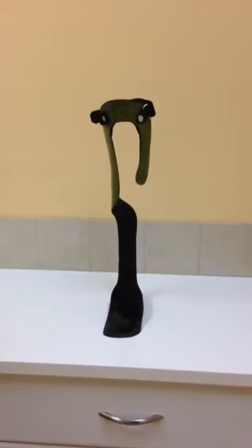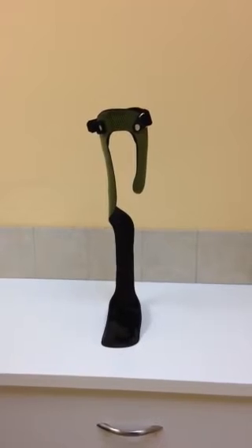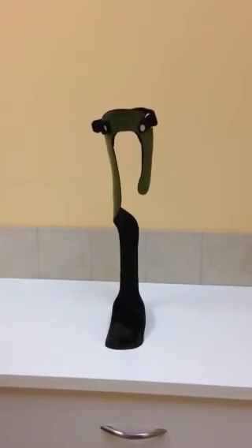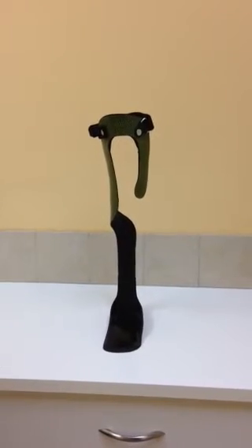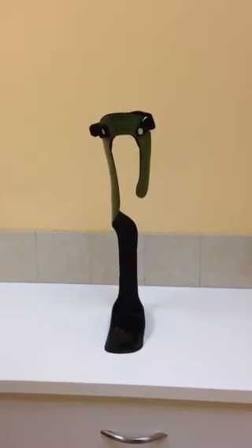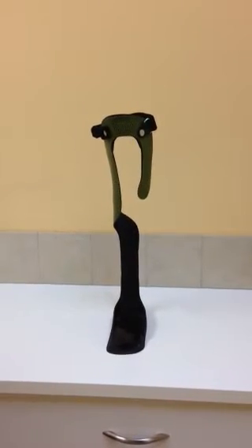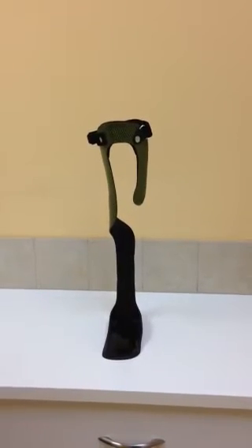This is our newest Helios XL running AFO, and this is a patented bracing system. Our newest brace allows for greater running, flexibility, jumping, and sports-like activities using a new graphite construction, which allows greater flexibility in the compression area of the orthosis.